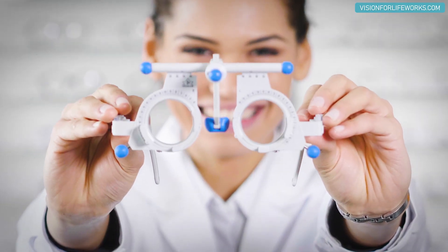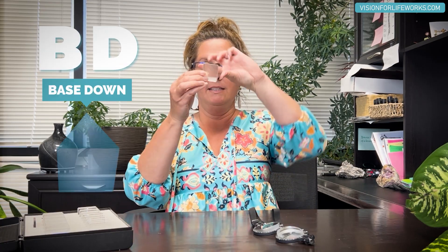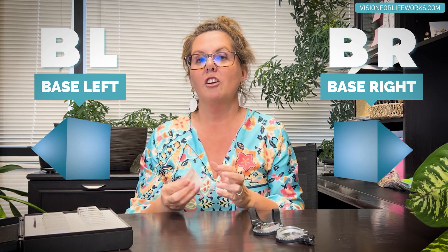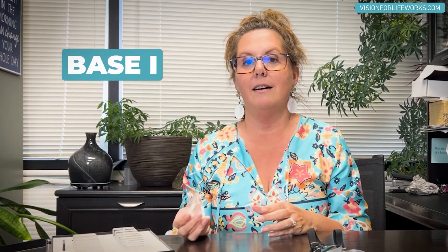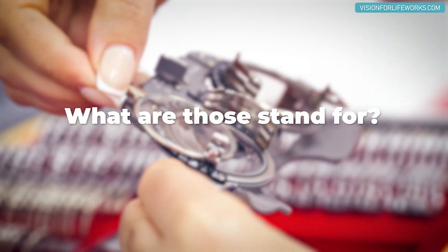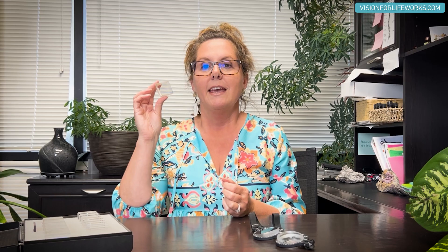If you've been prescribed prism in your glasses and it says BD, that stands for base down. If it says BU, that is base up — the flat base part would be up. Then there's base right versus base left, and there are also instances where it says BI (base in) or BO (base out). We're going to talk about what those stand for today.